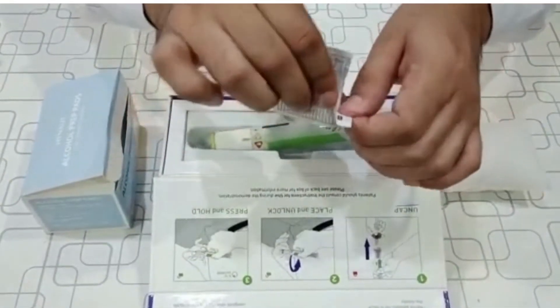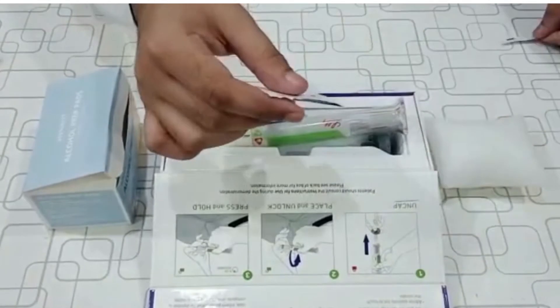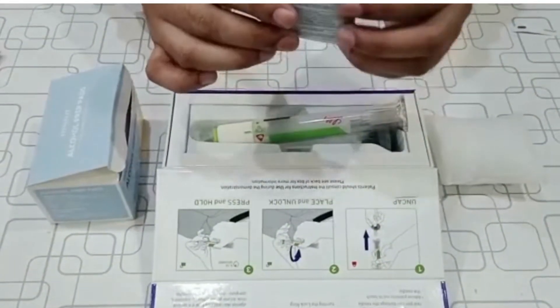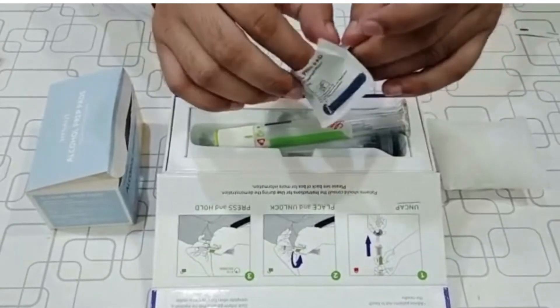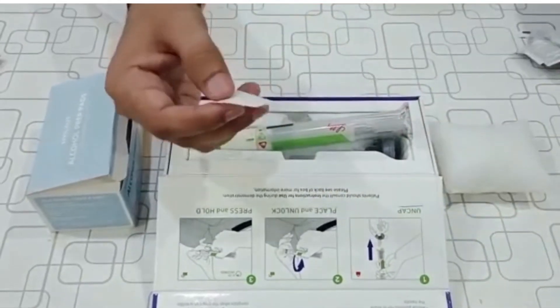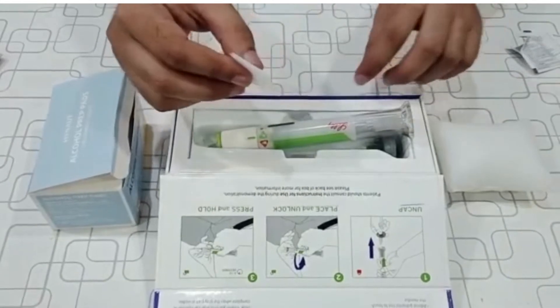The absorption of drug is maximum in these particular areas of the body like abdomen, thigh, and back part of the upper arm. But here I will use this sponge instead of skin just to show you how you will inject the dose.